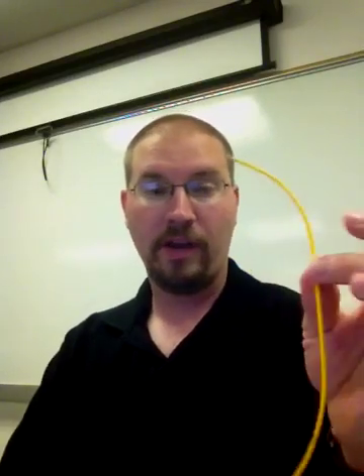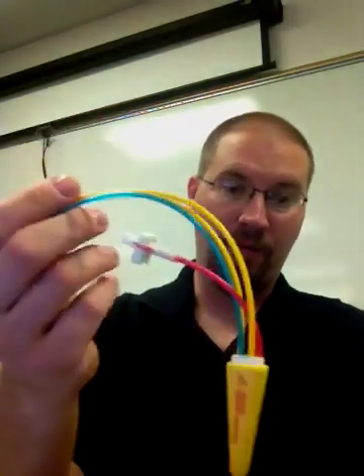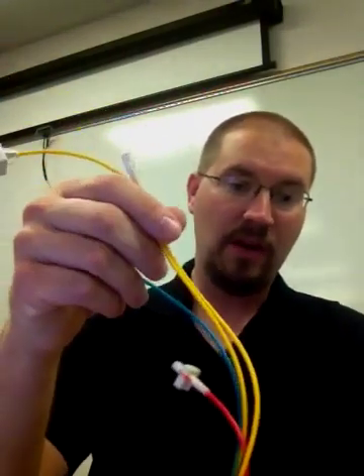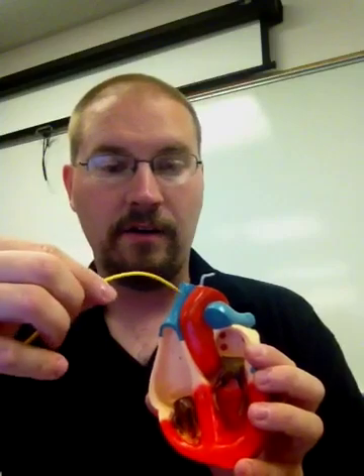This is the distal end of the catheter — we won't actually see this when working with the patient or interfacing with the equipment. What we'll see is the proximal end with all these lines, and we'll talk about what those lines are because we may interface with them while caring for the patient. This is inserted just like a central line. Here I have a cutaway of a heart — I have the right atrium here, the right ventricle below it, and the left atrium and left ventricle. This is inserted into a vein, so right here is the superior vena cava.